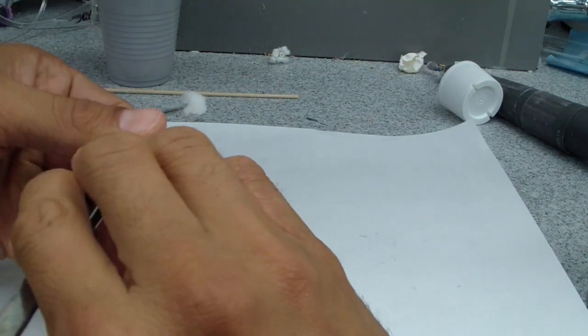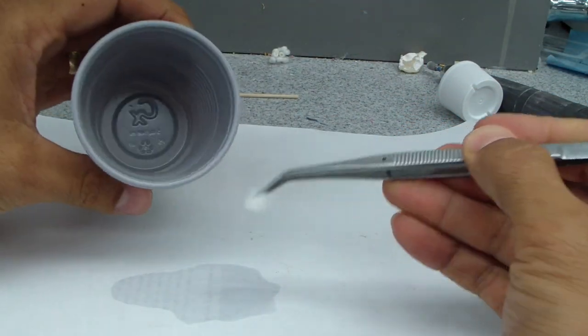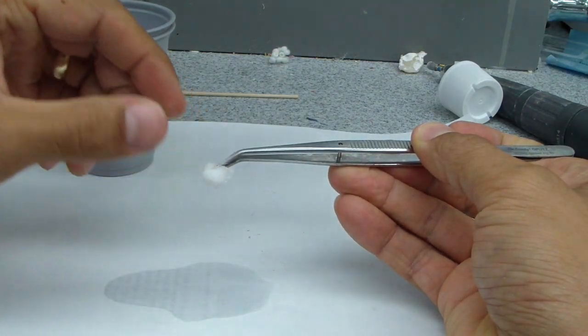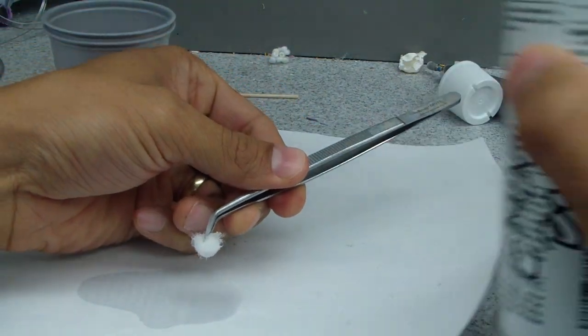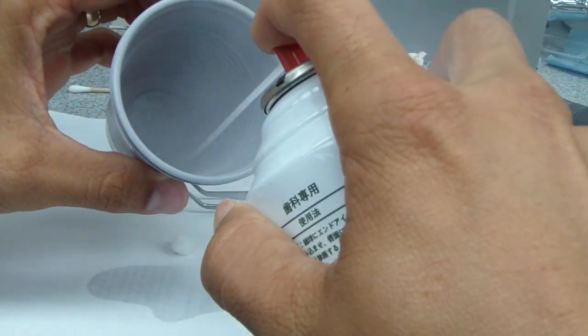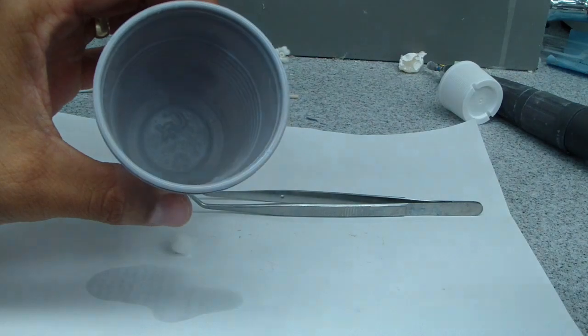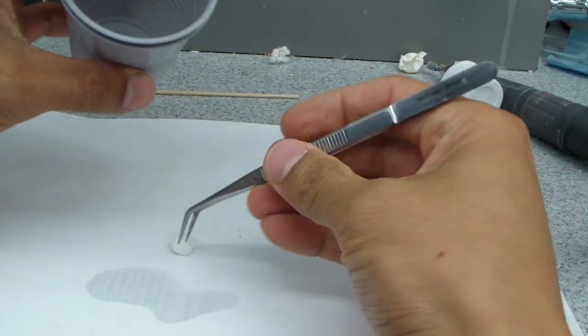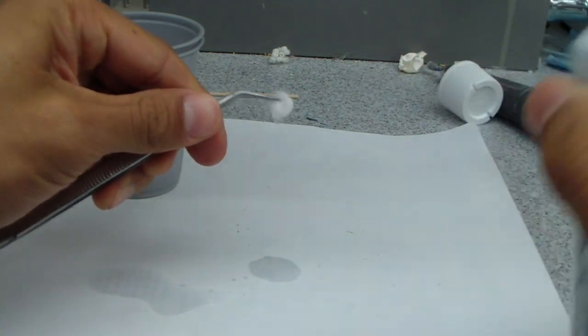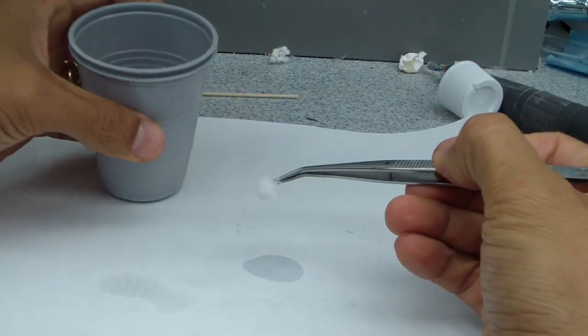It's cold. So one of the things that we do in the residency, what Jones also found, was that the dip versus spraying the bottom of the cup versus spraying five millimeters away, the five millimeters actually produced colder results.